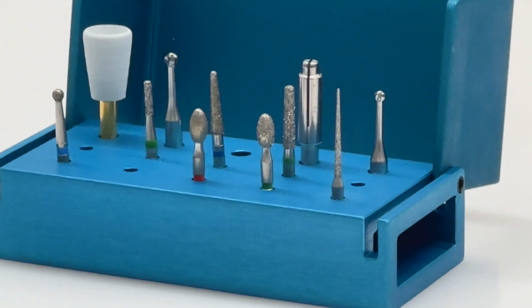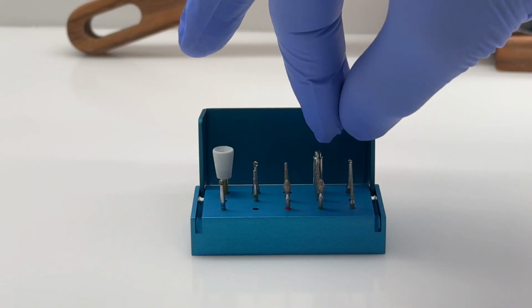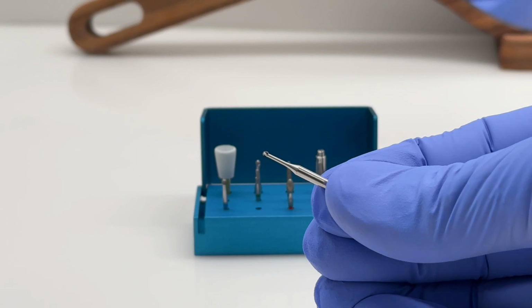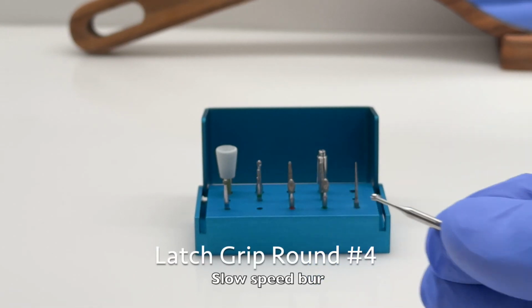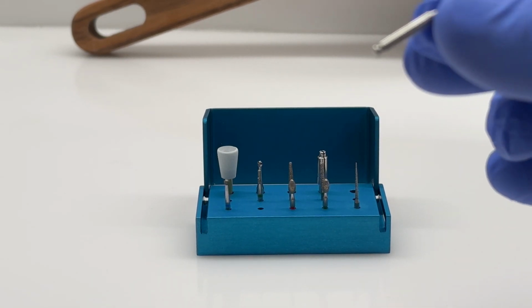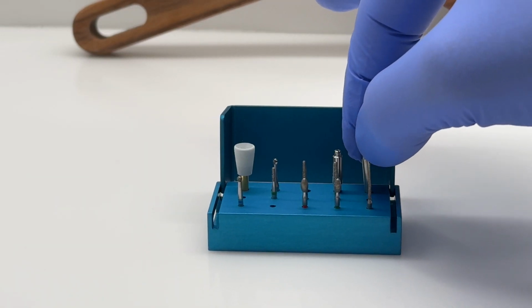Next, we'll go over the different burrs that are needed for a typical restoration. This here is a latch grip round number 4 burr. This is used in our slow speed. You'll see as I show here that there is the latch grip side. This is specifically for the slow speed.